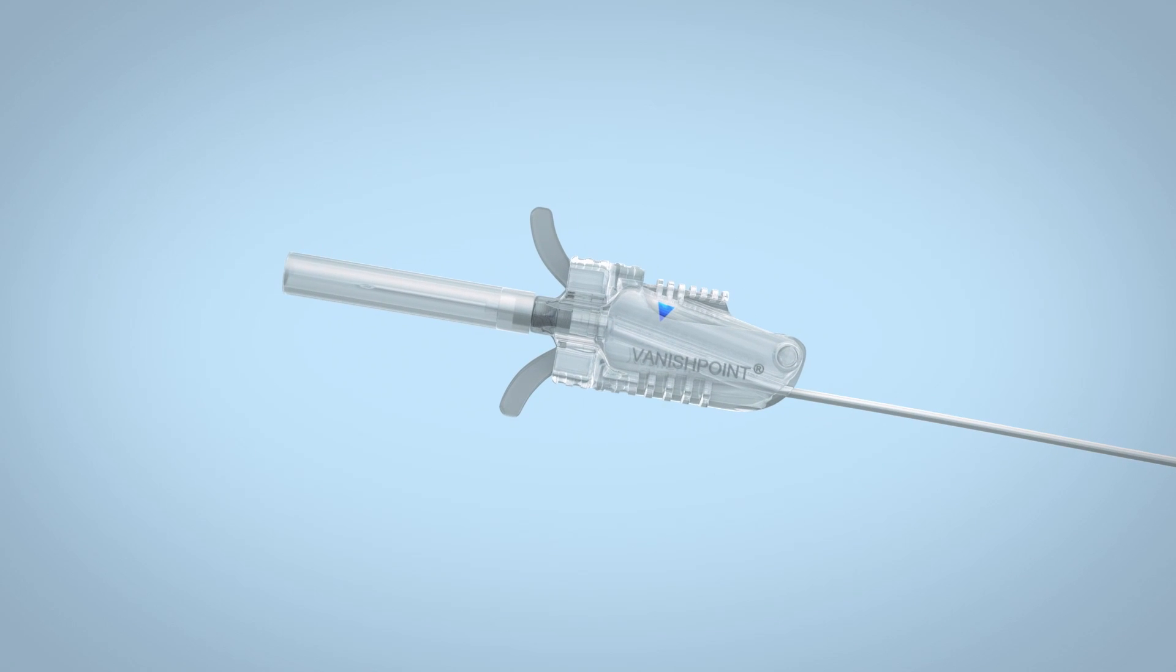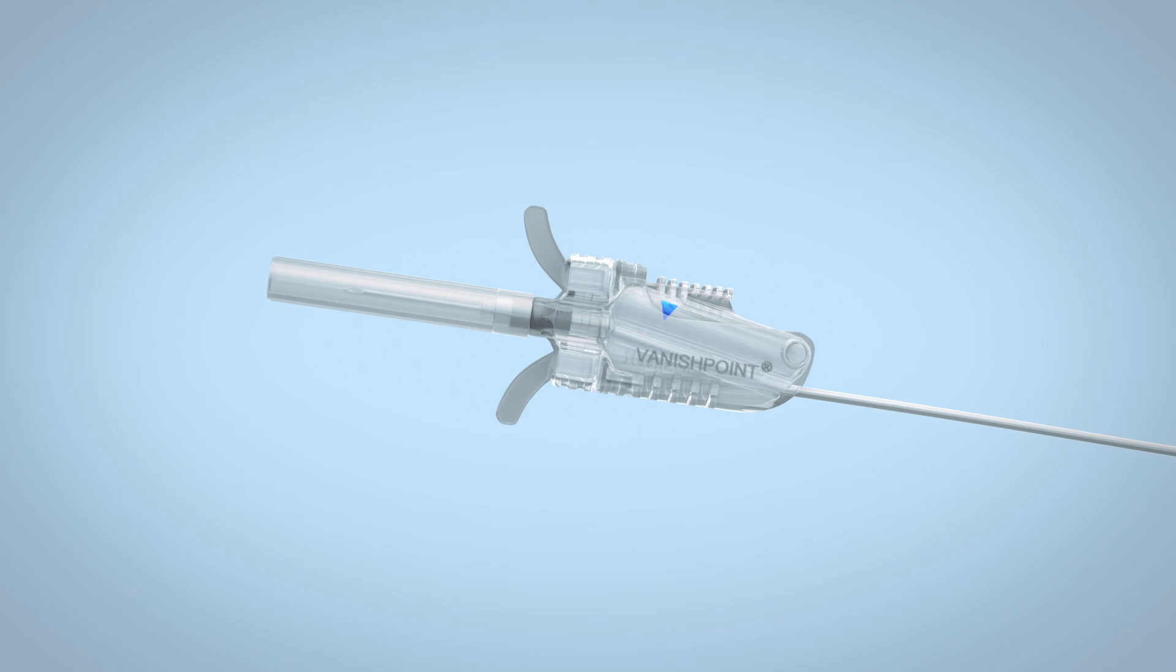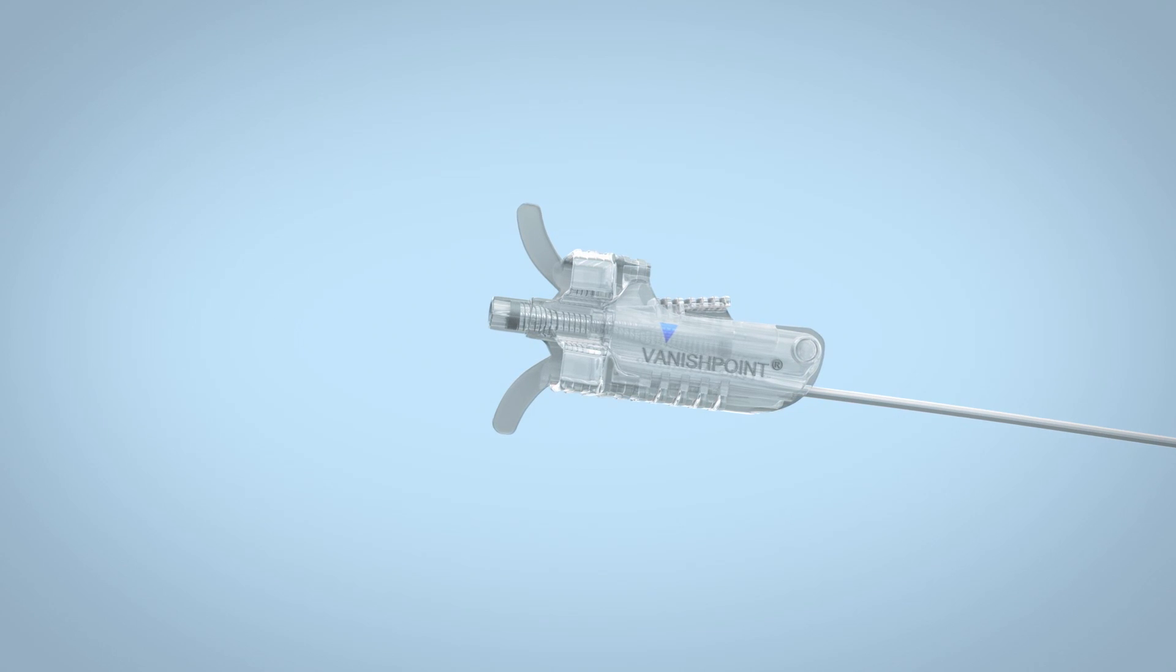This is the Vanishpoint Blood Collection Set, a unique blood collection device with automated in-vein retraction which effectively reduces the risk of needle stick injuries and blood exposure.